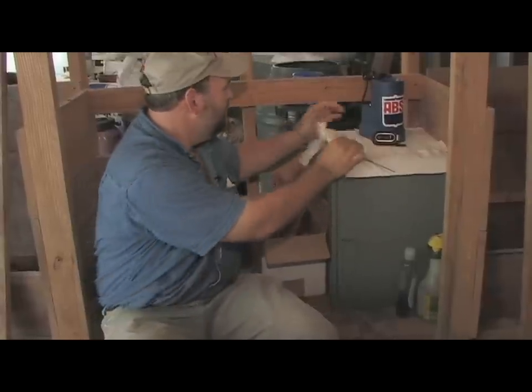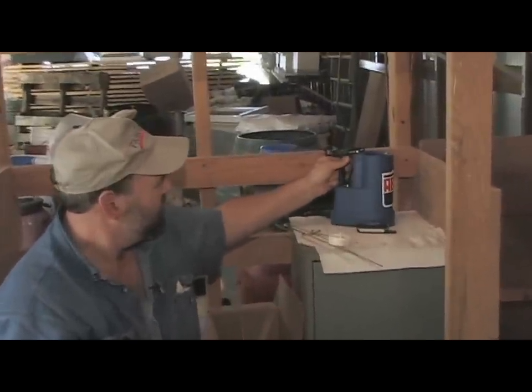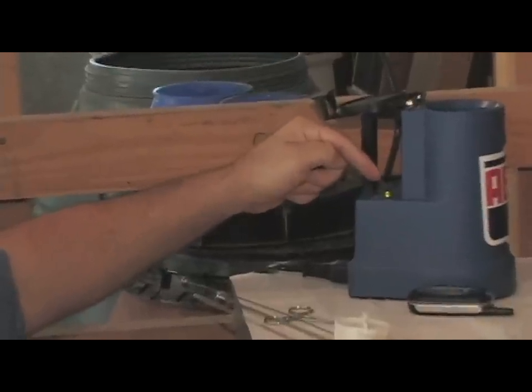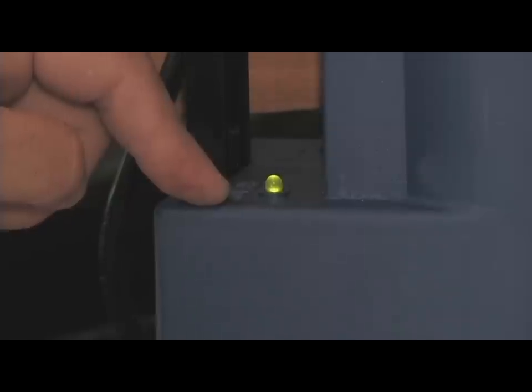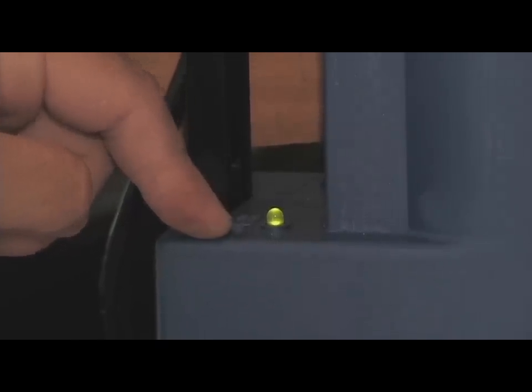The lights on the thermos are right here — it's got a red light and a green light. You just put tap water in it from the garden hose or something. If you come out here in a hurry and put warm water in it, it might be a lot hotter than 98 degrees, so I'd be very careful about that. They don't recommend it — they say not to — and I've done that before and made a mistake. I won't ever do it again. I just put water from the garden hose. On it today it's 90 degrees, so it's very close to the temperature I needed. But if it's 110, it'll also show green. All that's telling you is the water is above 94 to 98 — it could be way too hot. After about 100 degrees, it'll just about kill all your semen. So just be patient and let it heat up on its own.